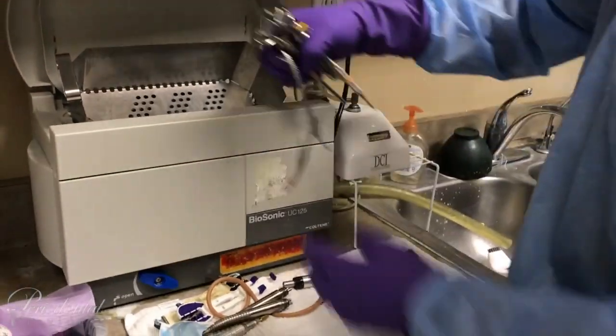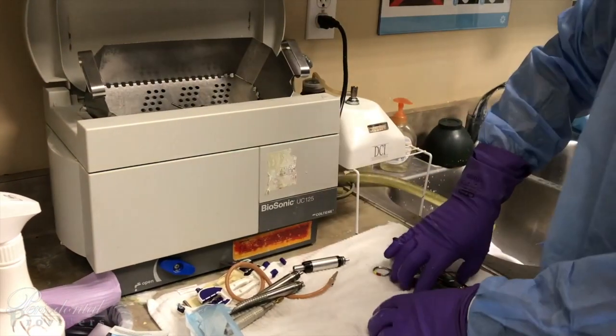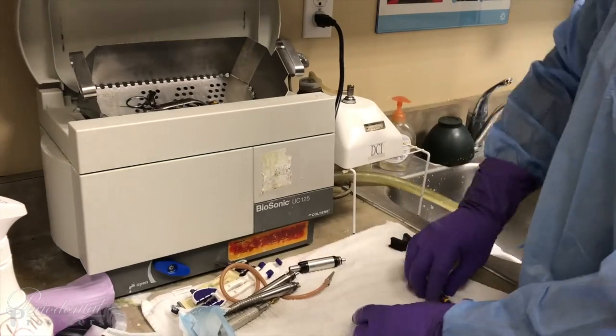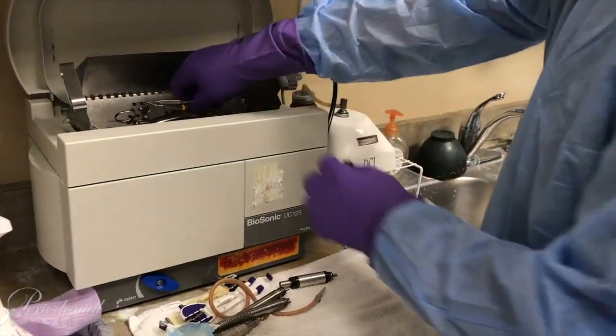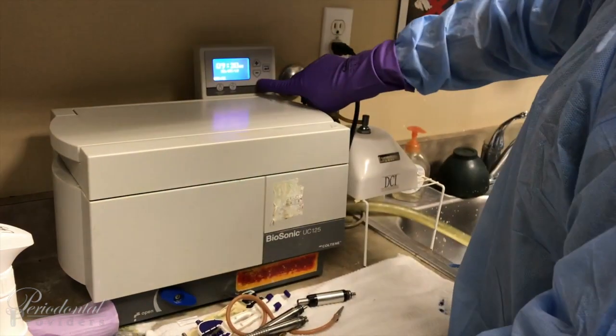The Orban knife should always be scrubbed thoroughly, making sure the dips inside are cleaned out correctly. Always check for any leftover debris — if any debris is left behind, utilize one of the instruments in the sink to remove it. Any dry blood can be removed by a light scrub. Once all instruments are scrubbed, go ahead and place them into the ultrasonic — not too many at a time, two to three. This concludes the video. Make sure your lid is always down and press the start button. Now you may remove your utility gloves.